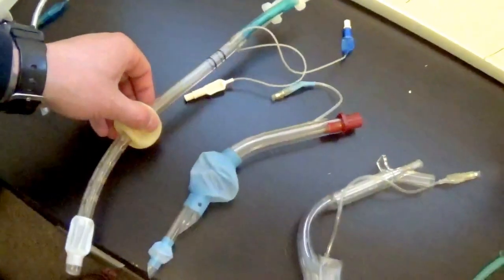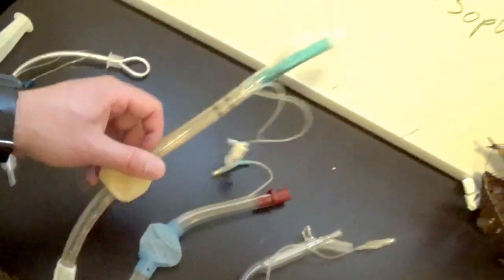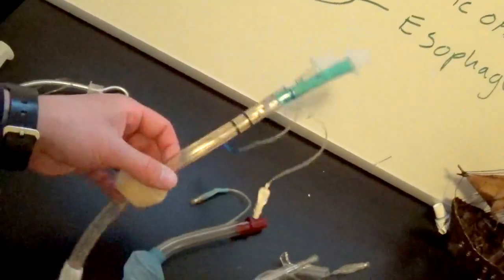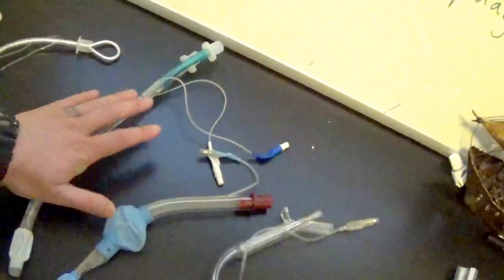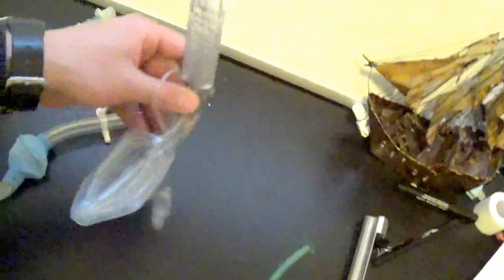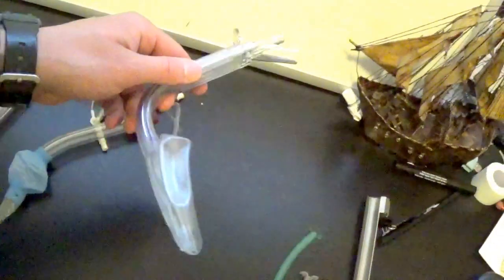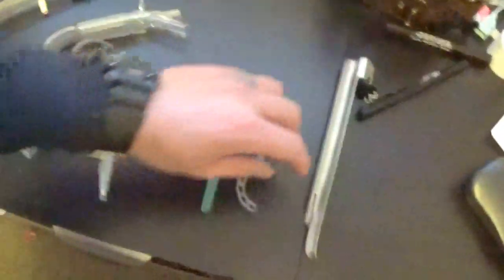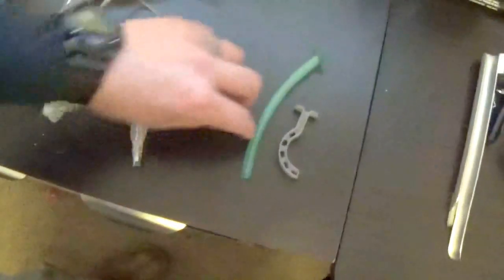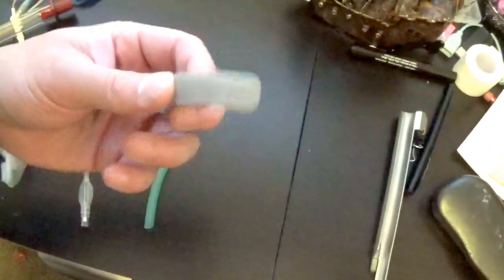Then you have your three advanced airways, called supraglottic airway adjuncts. You have your combi tube, which is kind of being phased out in some places, and the King LTD, which is replacing the combi tube. You also have your LMA, which is used primarily in a hospital setting. And then we have your basic life support airway adjuncts: your NPA — the nasal pharyngeal adjunct — and your OPA — the oral pharyngeal adjunct.